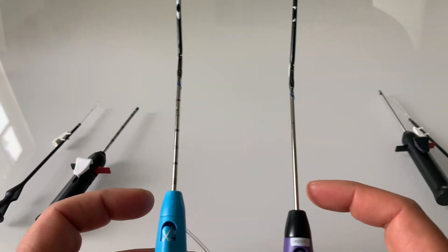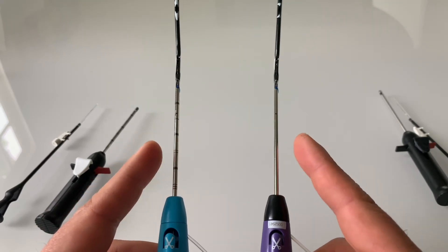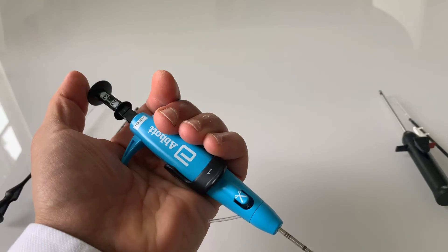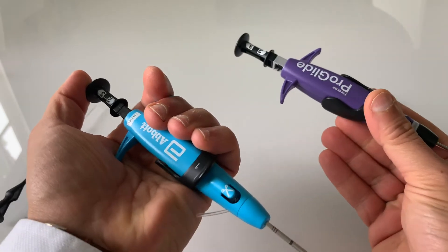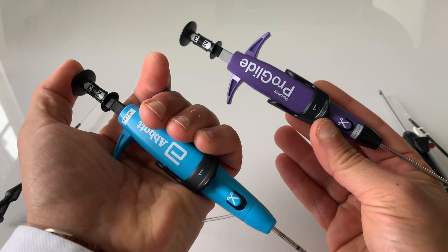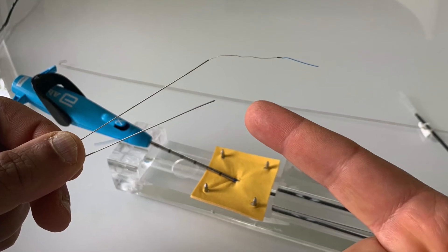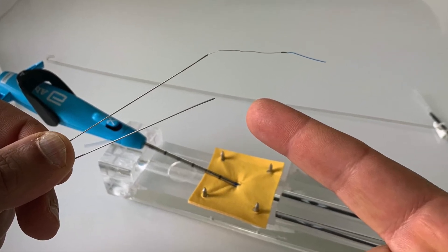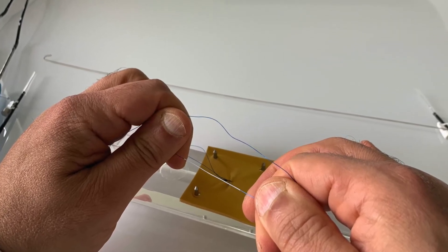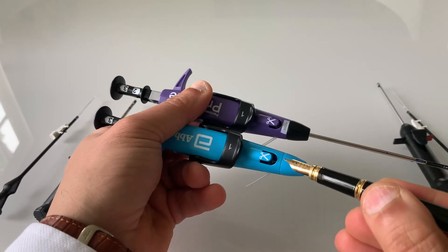When you compare to the old, the new device shaft now has depth markers on it. Plunger insertion is now slightly better than before due to utilization of higher tensile steel, which makes the needles effectively sharper and more powerful. The sutures are slightly easier to see, and the suture cutter port is larger in the new ProStyle.